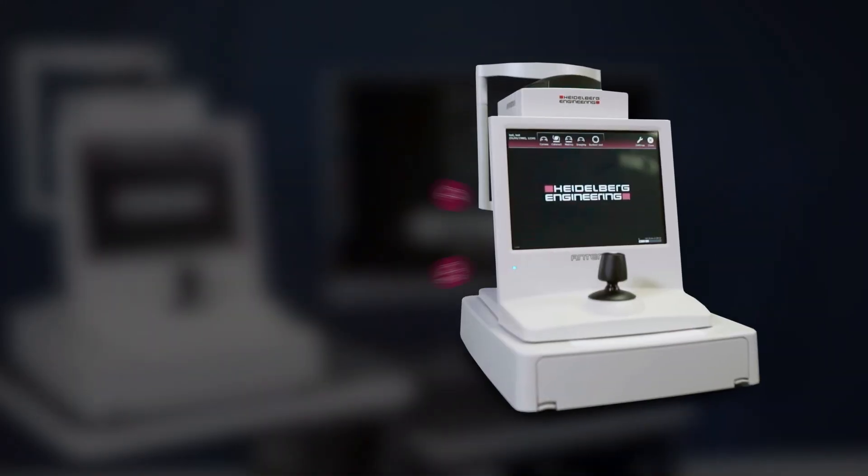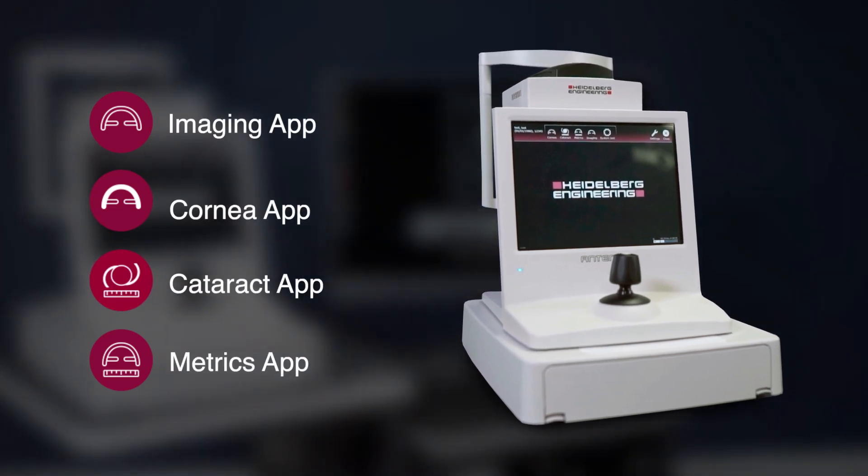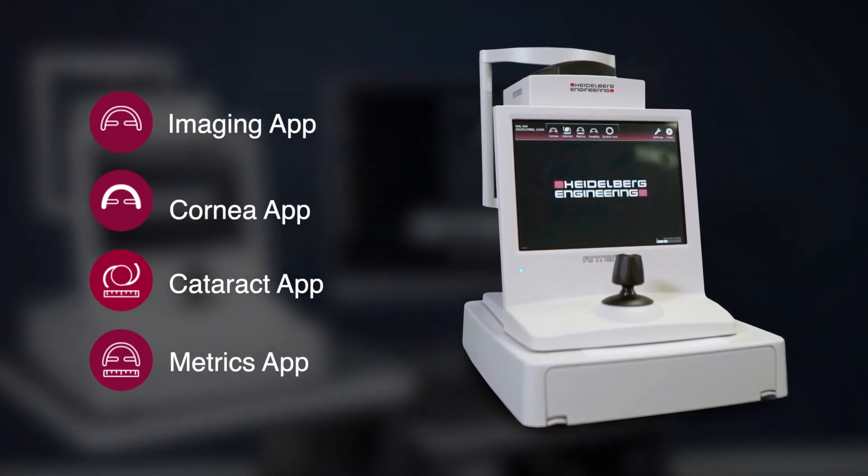Every Anterion comes with the imaging app. You can add additional functionality with the cornea, the cataract, or the metrics apps.